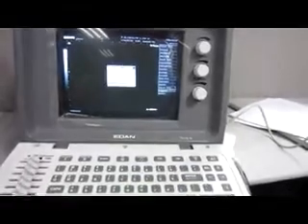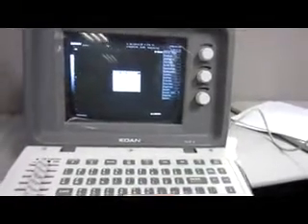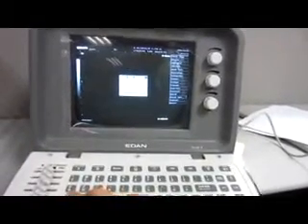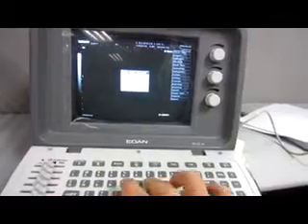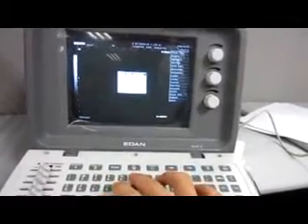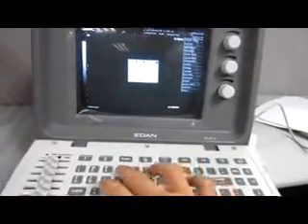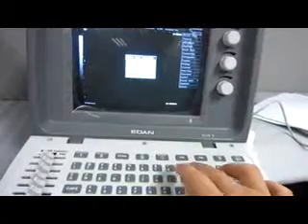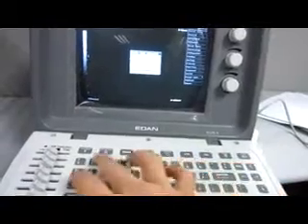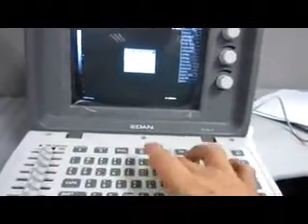The password is U-S6 206 207G. Then, okay. Here we need to first get the serial number of this machine's software and then send the serial number to the manufacturer, and they will generate the DICOM password, the activation code.